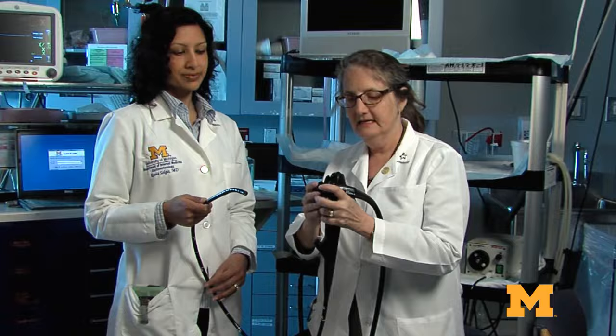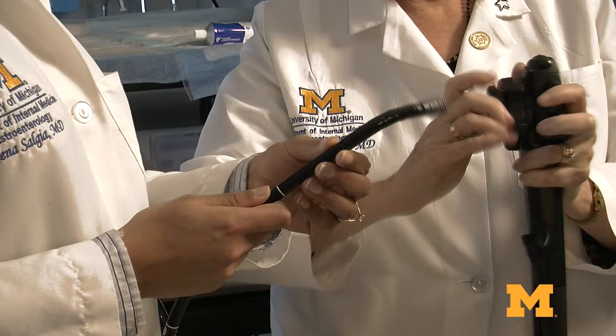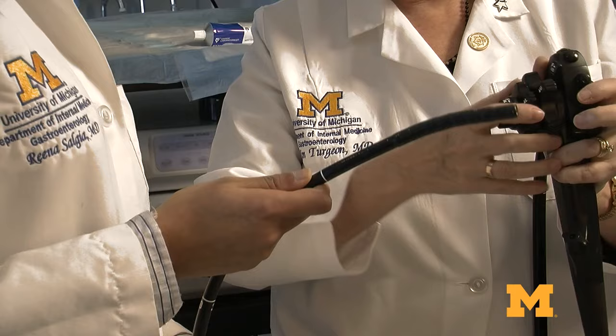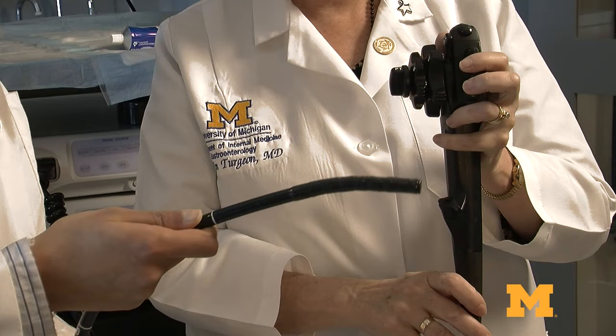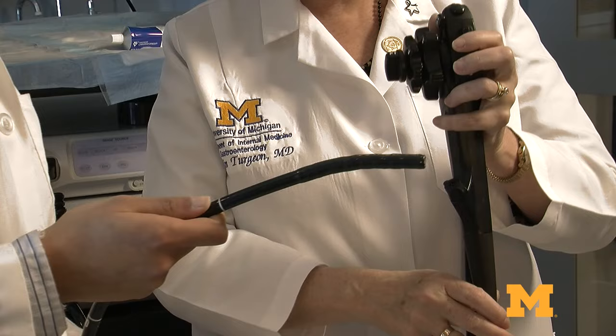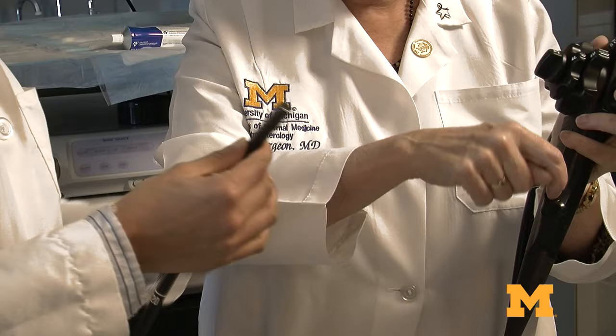The physician has dials up on the handle that they can turn, which you can see, that make the scope very flexible and able to get around corners. We also have buttons here where I can squirt water or air outside of the scope to either clean things up or wash, and we can suction out fluid. This also has a channel where I can put instruments down, which come out of the hole there.